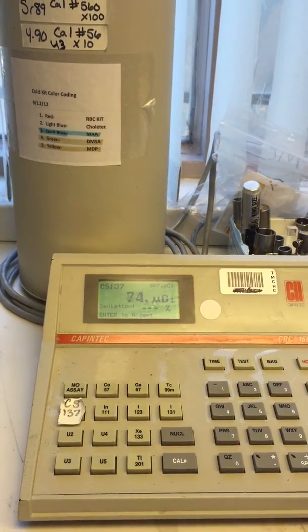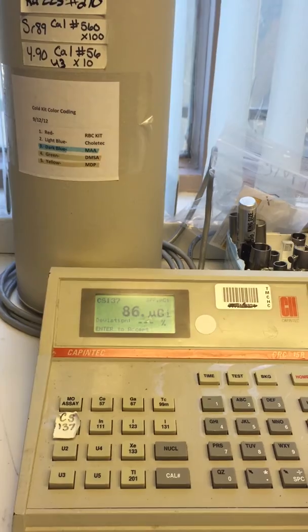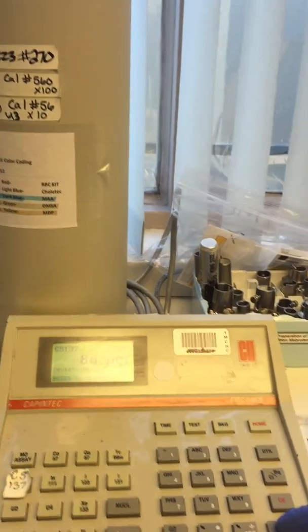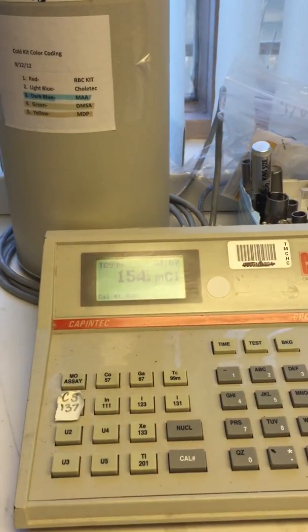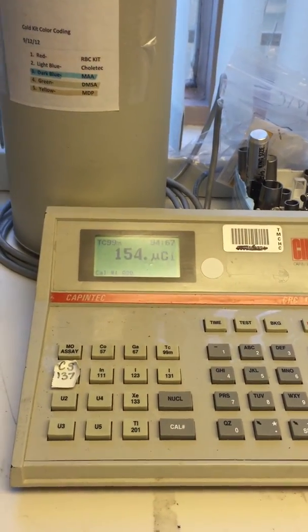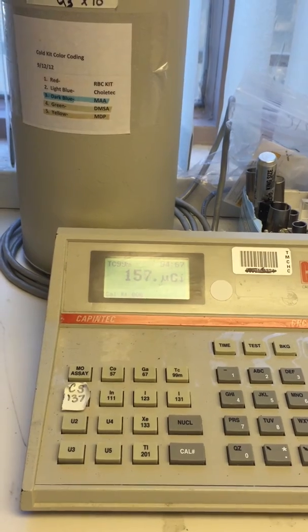Our target is 87, so let's see where it goes up to. Okay, so it was going up to 87, so we're just going to input that in here under cesium.